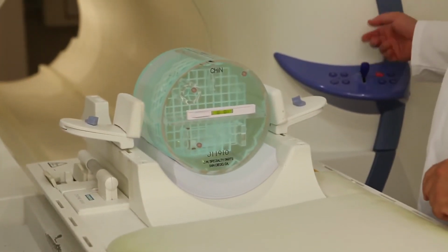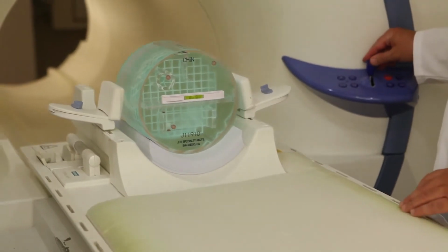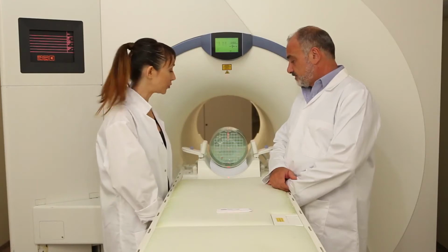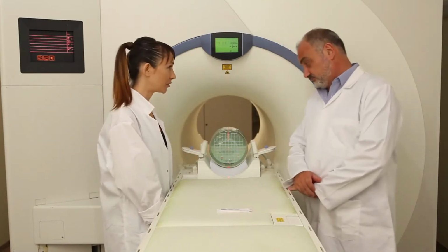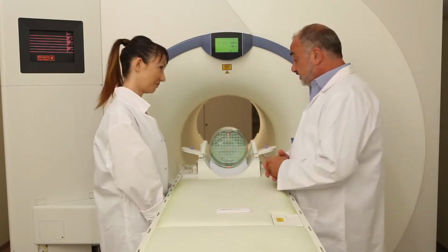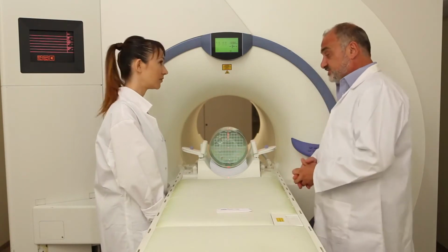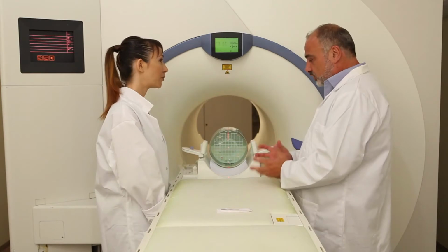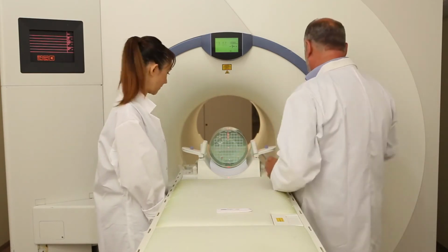Okay. It is difficult to underestimate the importance of correct positioning, as it can improve SNR by a factor of 2. Correct positioning is really important. Totally agree with that. So in order to be able to perform this, we have to put all the objects at the center of the field.